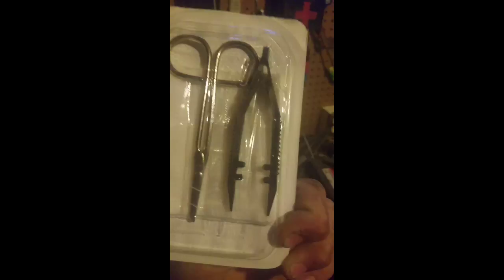Got smaller rolled gauze. Swabs, lots of them. We got tape. These are pretty cool — little suture removal kits, we got two of them. We got tweezers, snake bite kit, more tweezers, scissors, tongue depressors, pins, tape, and yeah, some other stuff.